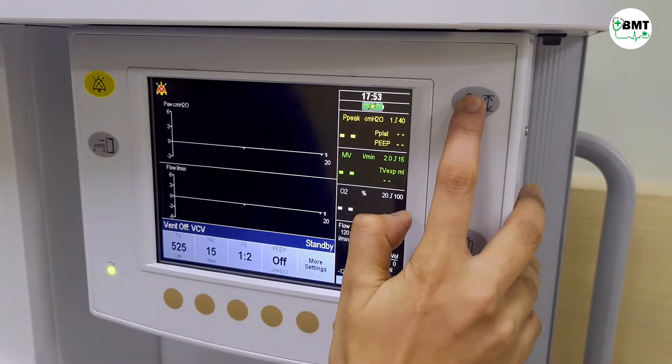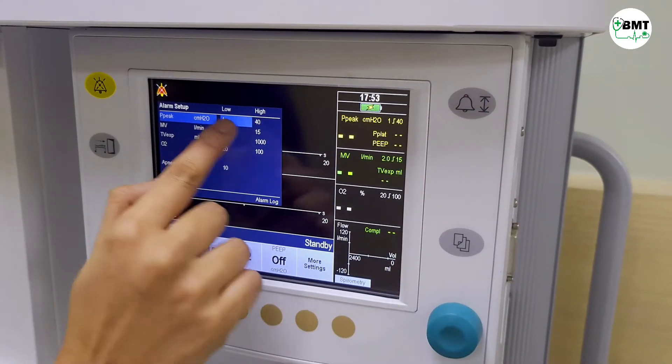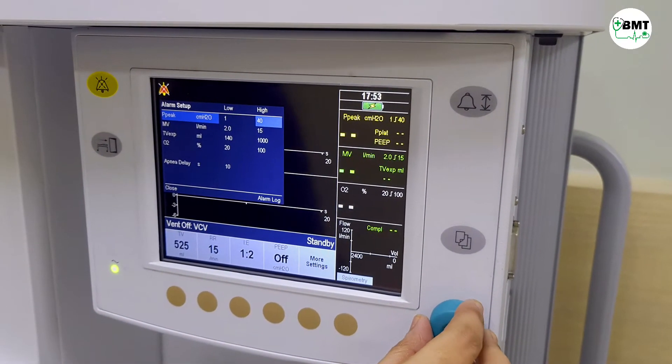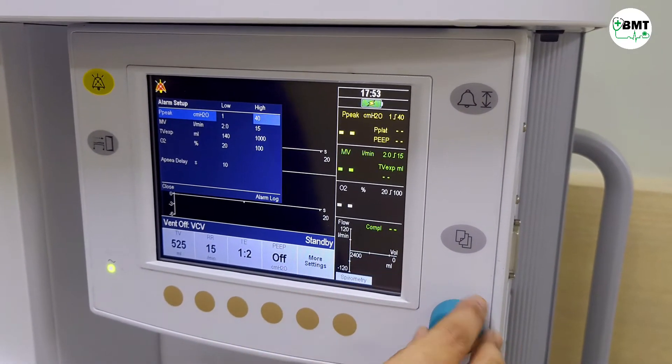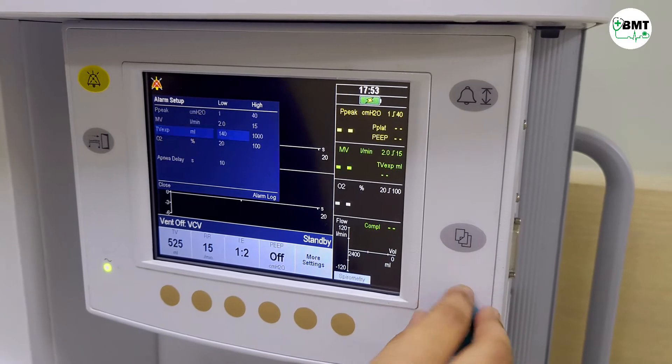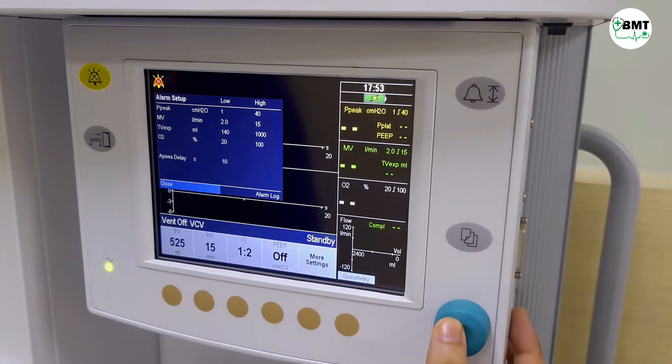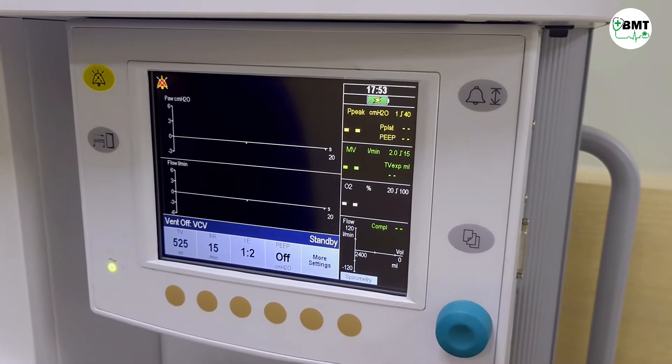This is used to set the upper and lower limits of the alarms. Close.